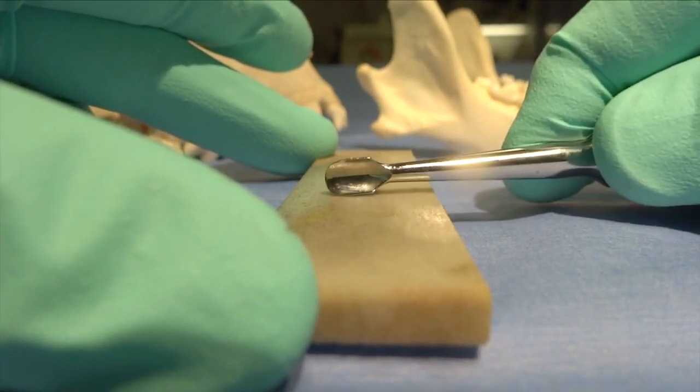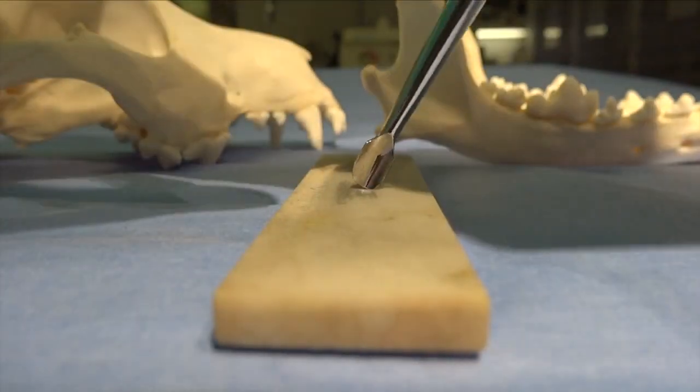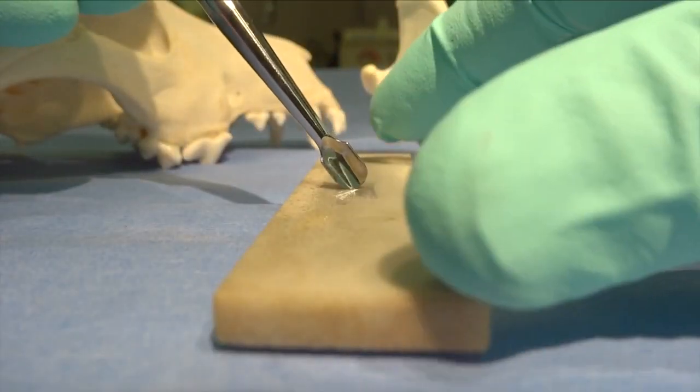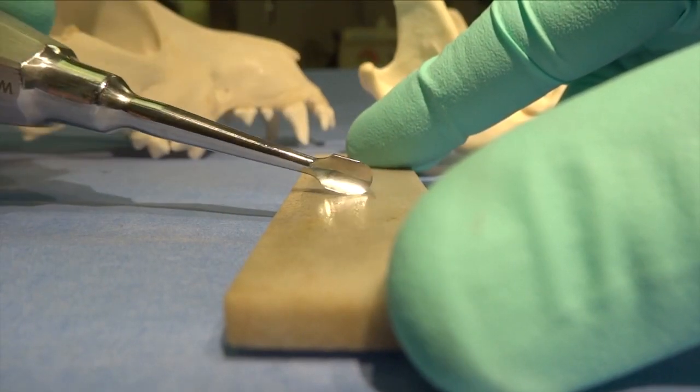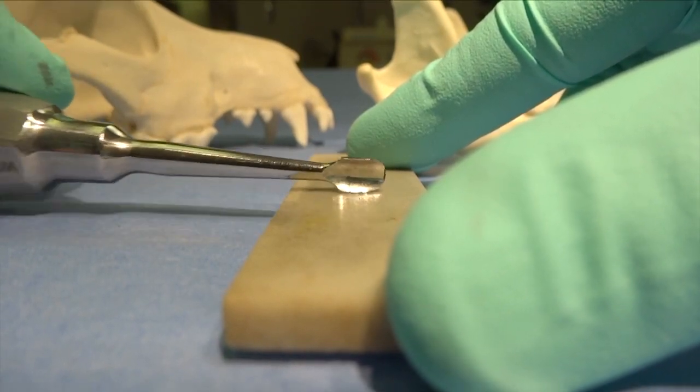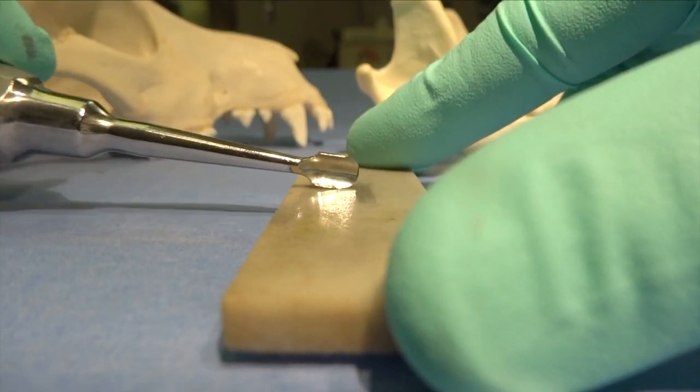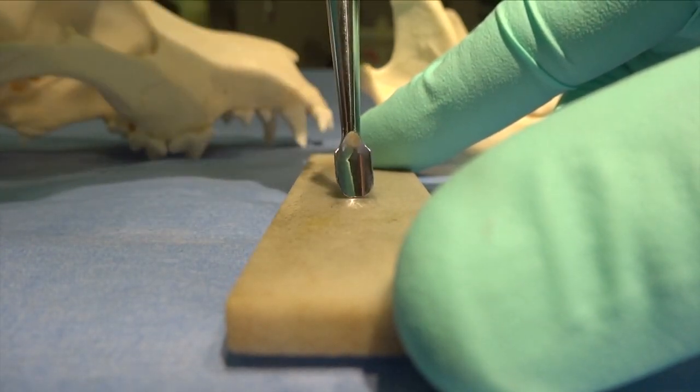You can see how we can do that if that stone is flat on the table. The problem with that is you've got to get a table level. You've got to use your hand that you're not used to using, either your left or your right hand. Unless you're ambidextrous, it's a little bit cumbersome.